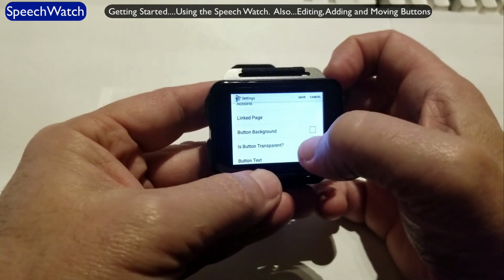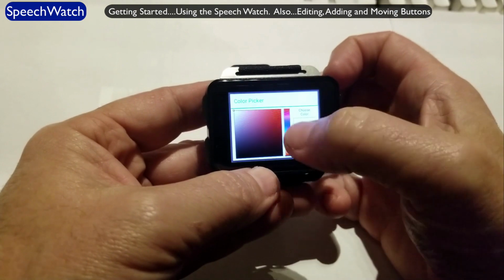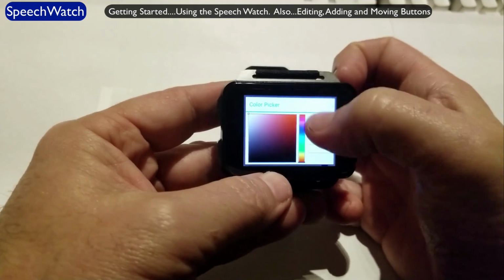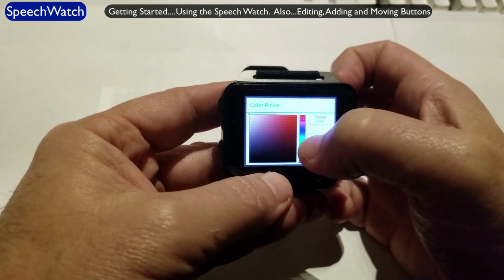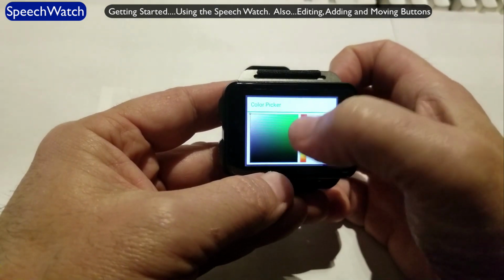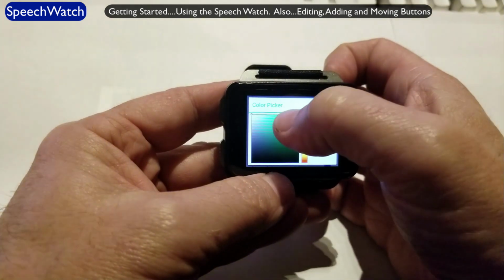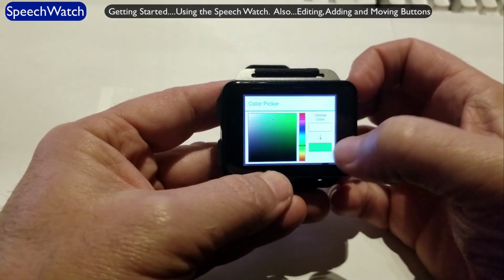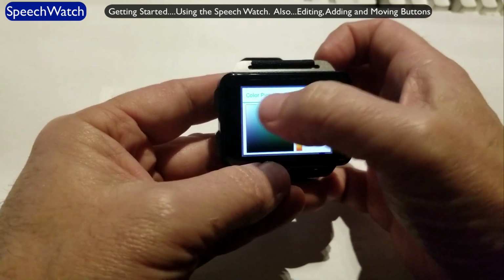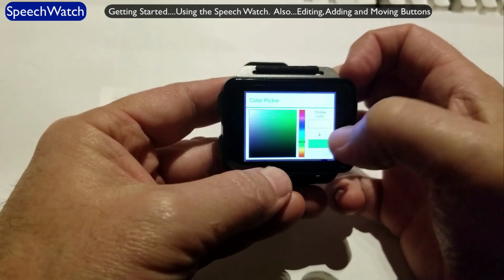Link page. I can change the button background. Right now it's white. So let's change that just to show you how it works. So when you go into a color picker throughout the SpeechWatch and in Talk Tablet, first thing you want to do is, what is the general color you want to choose? So let's suppose we wanted to have a green background. So on the spectrum here, we touch here somewhere in the green. On the left-hand side, then we have shades of the color you selected in the spectrum. So we want to go a little brighter green. And as I'm selecting these, you'll see this button in the bottom, the square in the bottom right-hand corner. That's the actual color that we've selected from over on the left side here. So I like that color too. So to confirm that that's the color I want for my background, I just simply touch it.